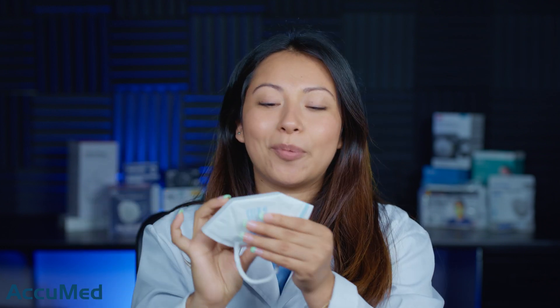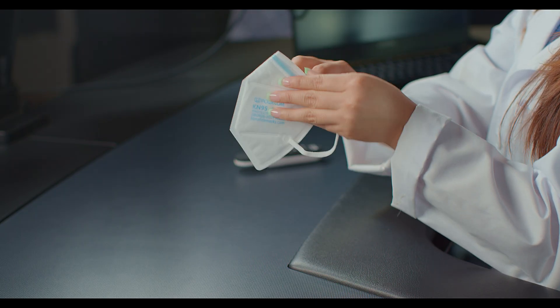Let's go ahead and try one on. I do want to point out that on their packaging it doesn't state that they are a children's face mask, but on the listing it does say they are a children's size face mask, and as you guys can see these things are tiny. They are probably perfect for a maybe seven year old and under. This is how they look.